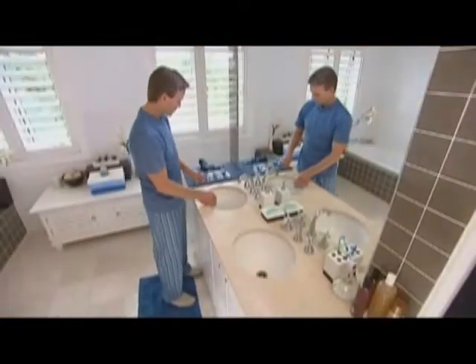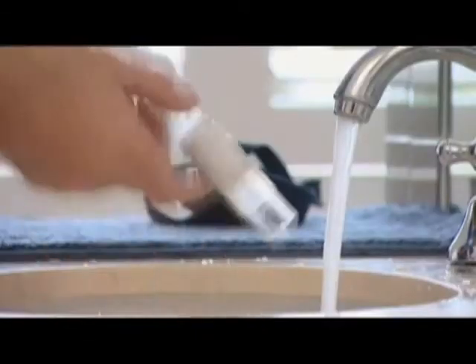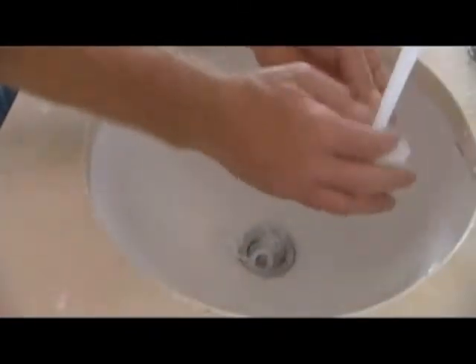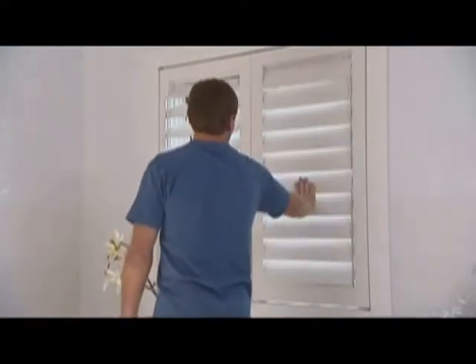To wash, fill your sink with warm water and add mild liquid soap or diluted detergent following the manufacturer's recommendations. Hand wash the parts, including your headgear, in warm soapy water. As a general rule, don't let mask parts soak for a prolonged period of time. When you have finished washing, rinse each part well with clean water. Then allow the parts to air dry, away from direct sunlight and heat.